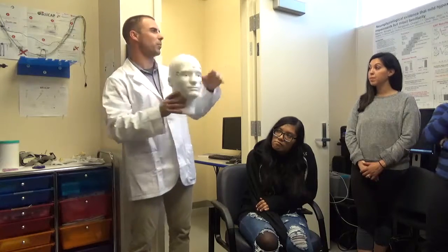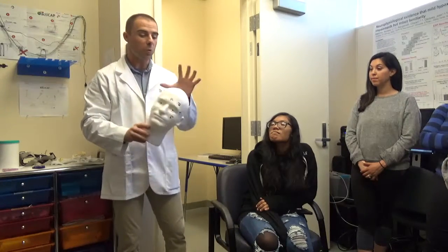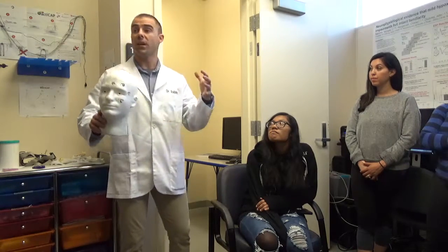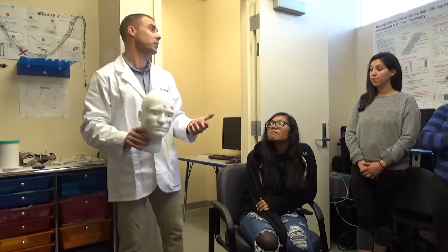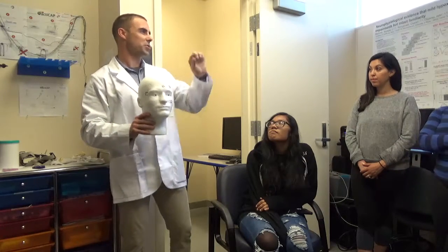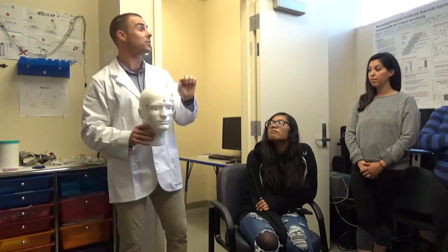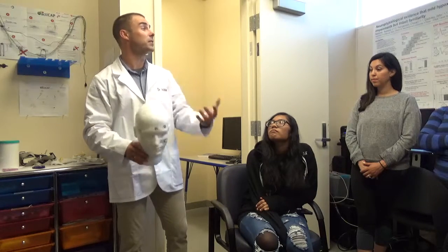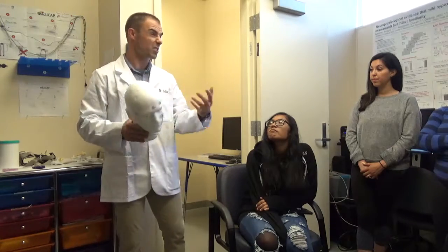It's a lot easier when we can show it on Blackboard and I can draw. And maybe later we'll get some more styrofoam heads you can draw on to diagram it out. But the idea is we need that gel, right? We're going to return to this idea of impedance. Impedance is the blockage of the electrical signal, the relative blockage, because you're going to get some signal. It's a measure in kiloohms of how good the signal is that we're recording at the scalp with the electrode, which is basically being impeded or stopped by those dead skin cells and all the other stuff that needs to be cleared out of the way.